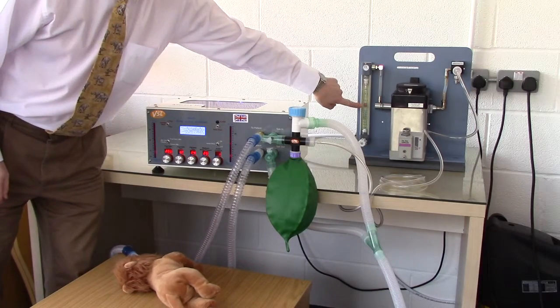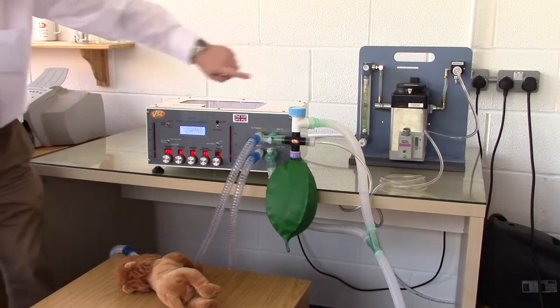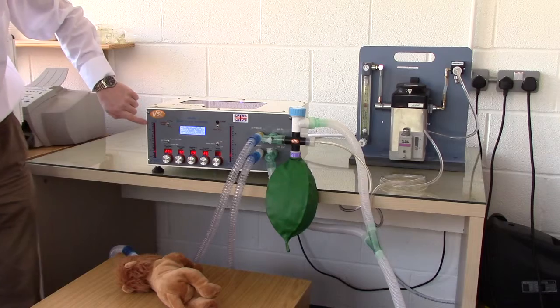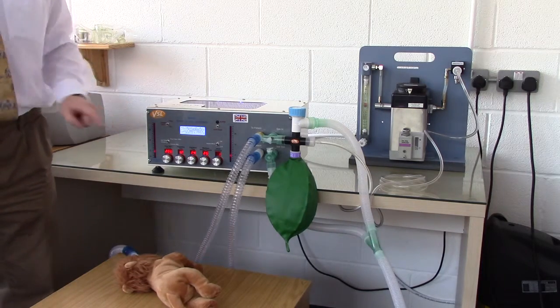Whenever Merlin is used in non-rebreathing mode, the flow meter setting on the anaesthetic machine must either match or exceed the minute volume shown on the screen. Otherwise, there will be insufficient gas flow for normal operation. This concludes the Merlin non-rebreathing setup procedure video.